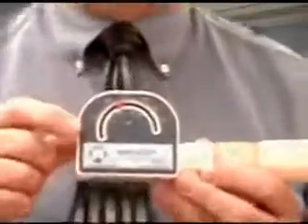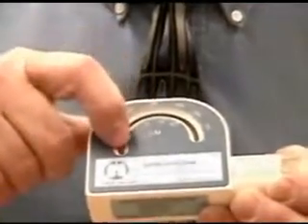What you need to do first is set the indicator — this red button — to zero, all the way down. Then instruct your patient to take in a deep breath and blast it out as hard and as fast as they can.